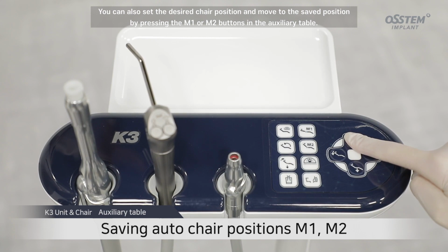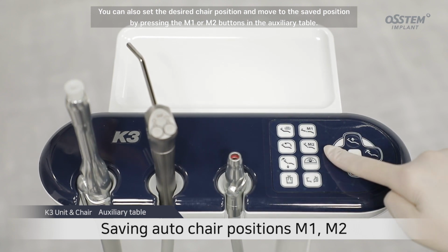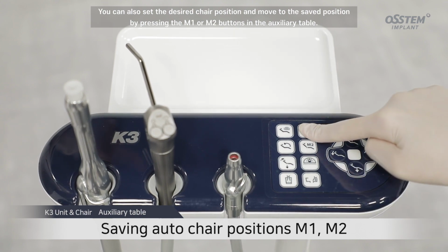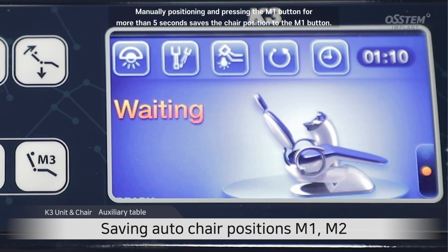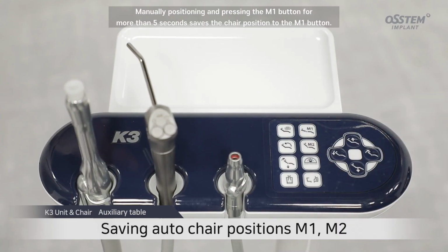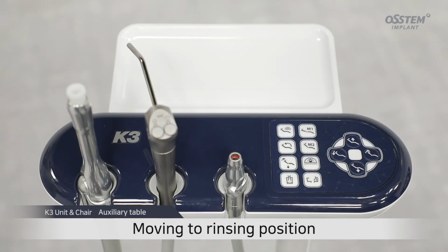You can also set the desired chair position and move to the saved position by pressing the M1 or M2 buttons on the auxiliary table. Manually positioning the chair and pressing the M1 button for more than 5 seconds saves the chair position to the M1 button.